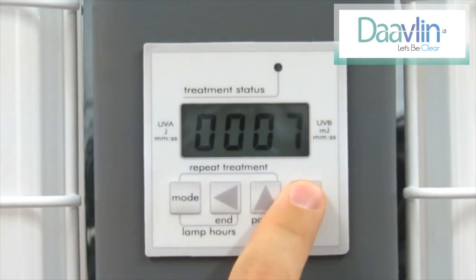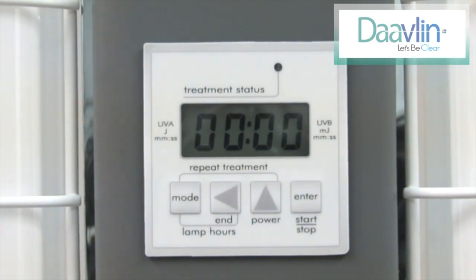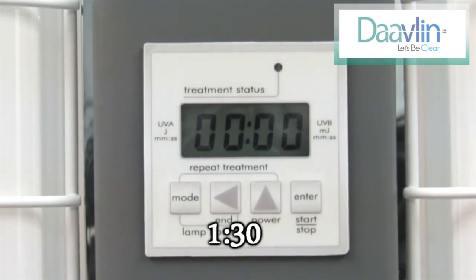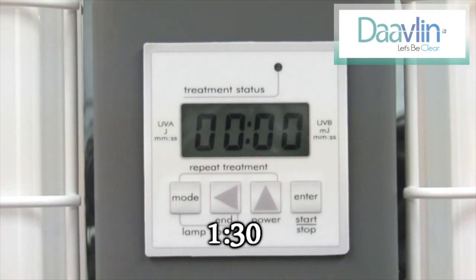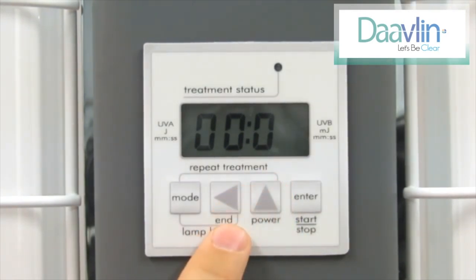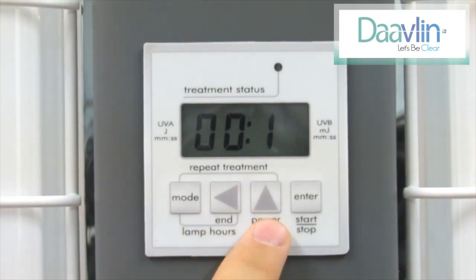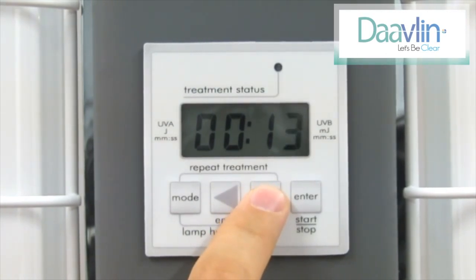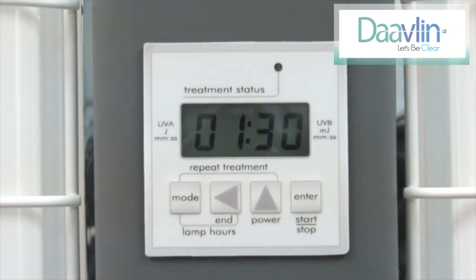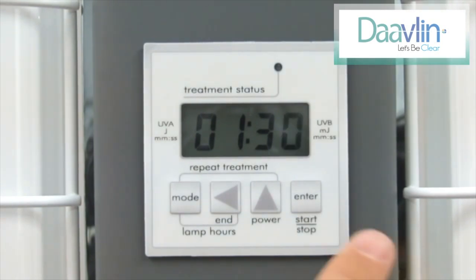A new screen will appear that has four zeros separated by a colon — this is where we will enter the backup time. In our example, the backup time is 1 minute and 30 seconds. Press the up arrow once and a 1 will begin flashing on the screen. Next, press the left arrow one time to move it a space to the left. Now enter the 3 by pressing the up arrow three times. Press the left arrow one time to move both the 1 and the 3 a space to the left. Since the zero is already there, we are finished entering 1 minute and 30 seconds. Remember to hit the enter button to lock in the backup time.